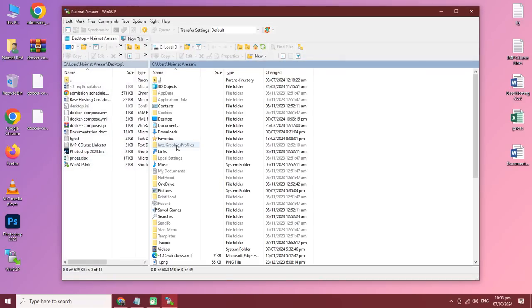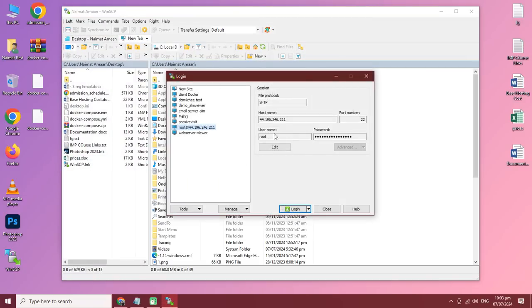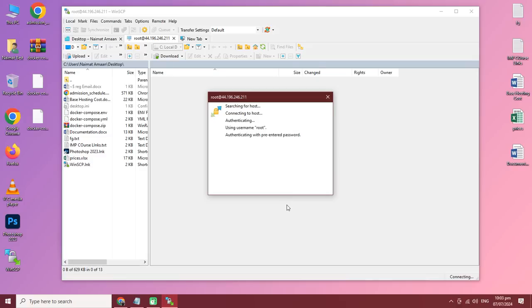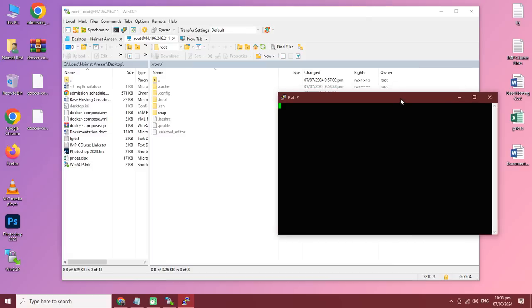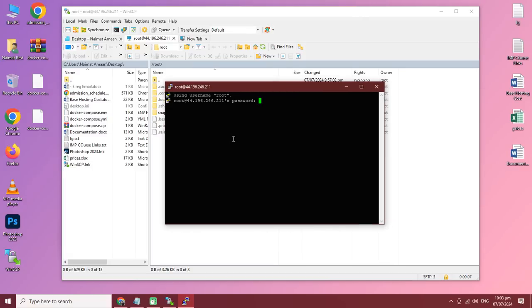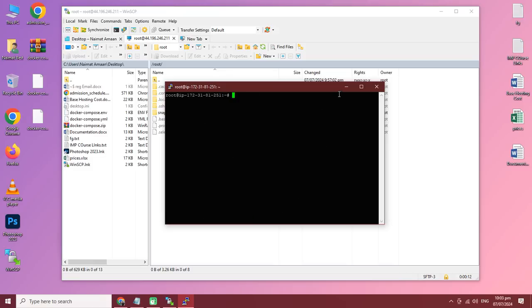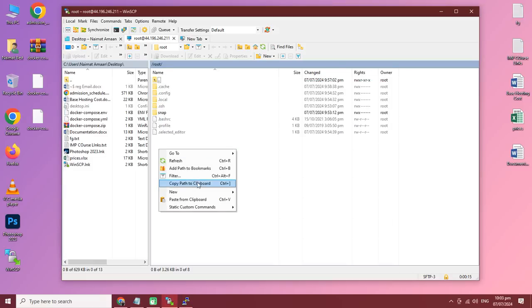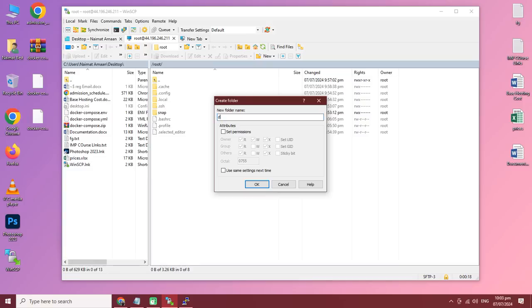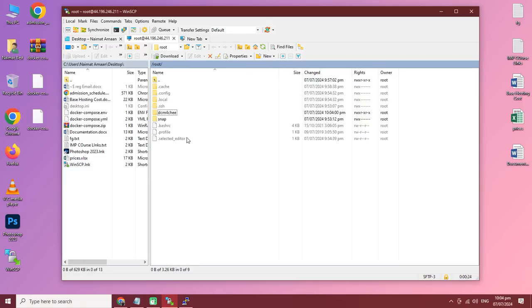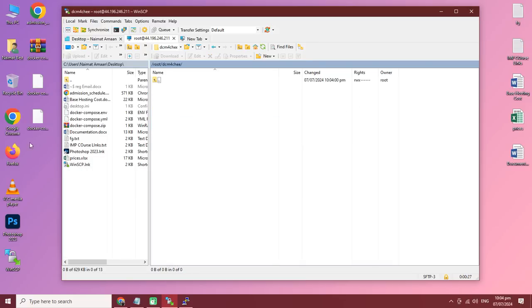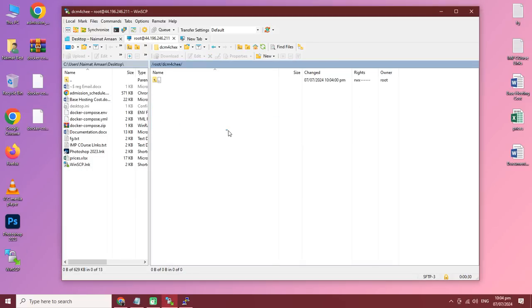I am using AWS and this is my server. I am going to log in and connect via PuTTY. Now, the second step is you need to create a folder in this directory called DCM4CHEE.